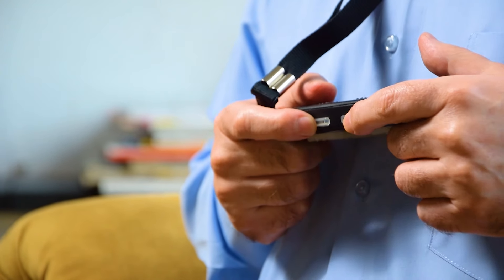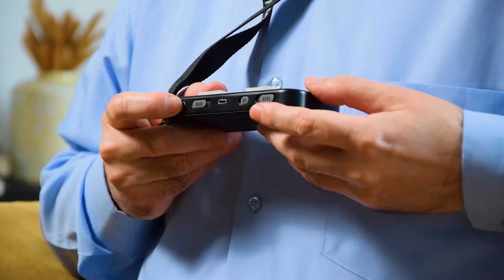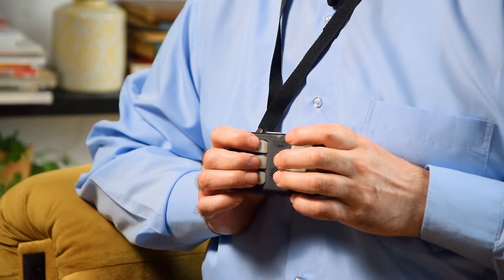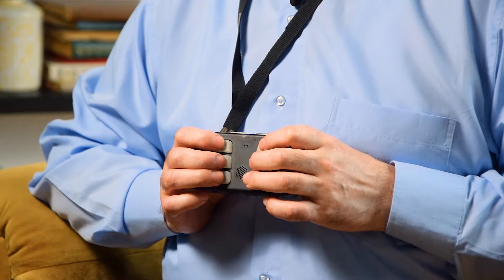In addition to these keys, there are two buttons on the top of the device that execute different commands depending on the context. At the bottom there is a group of switches that allow you to change the settings of the communicator: the mode of its operation, whether symbols are transmitted as a whole by all points simultaneously or transmitted sequentially. You can adjust the vibration intensity and change the speed at which symbols are transmitted.